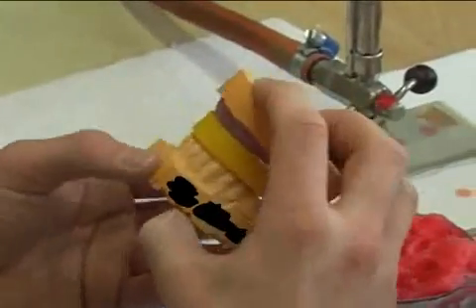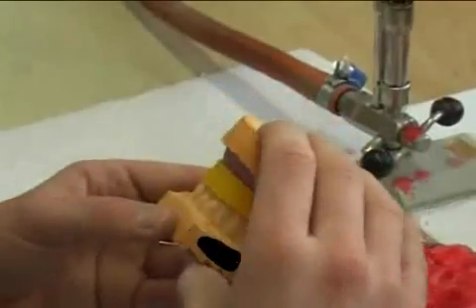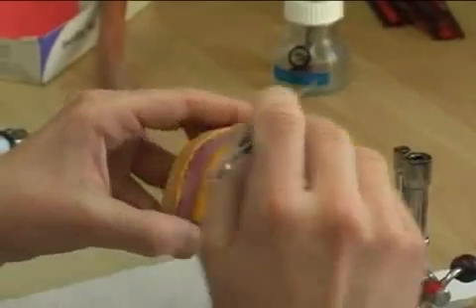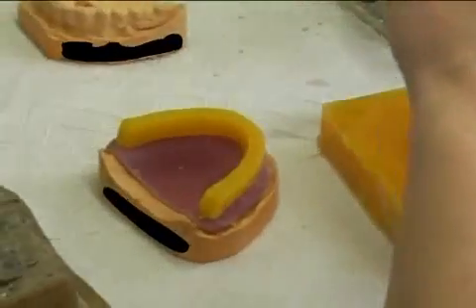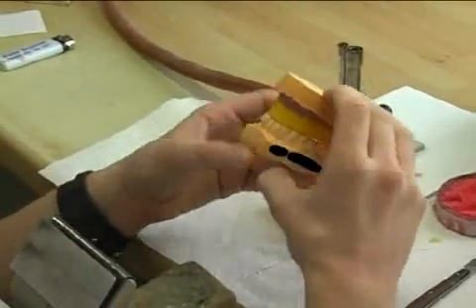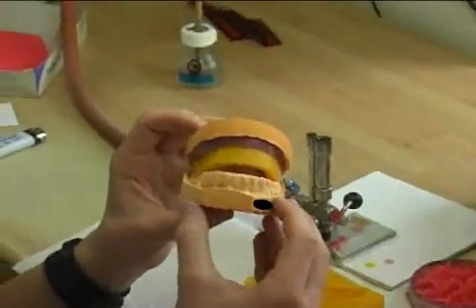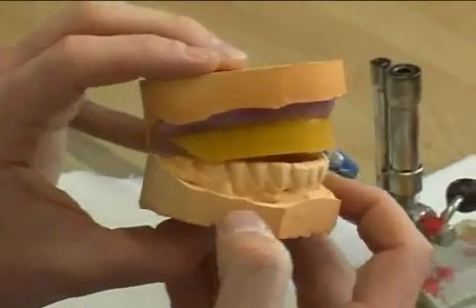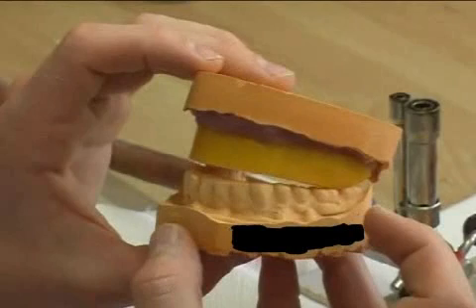Here you see how such a bite template is produced with the aid of a plaster model. The dentist first takes impressions of both jaws and provides the technician with a rough idea of the positioning or relation of the jaws by means of a so-called squeezer. This is a silicone compound that is placed between both jaws and then hardens. Once hardened, the impressions and the squeezer are given to the technician, who can now produce plaster models, position them roughly towards each other, and ultimately produce a proper bite template.